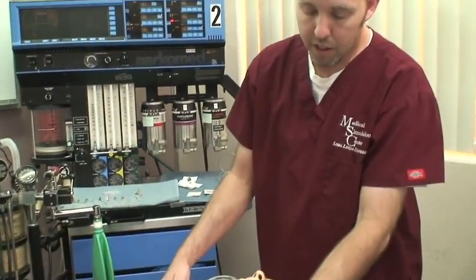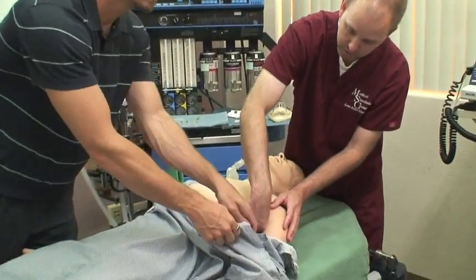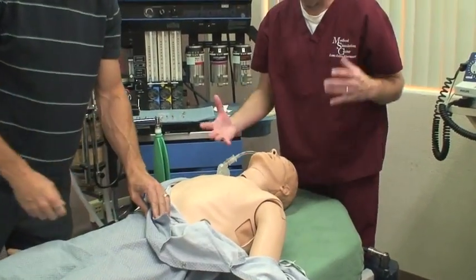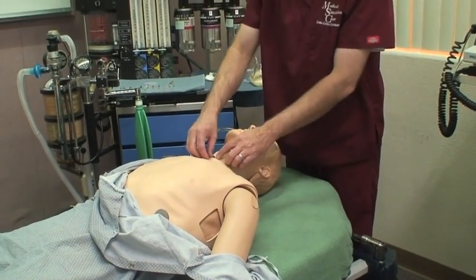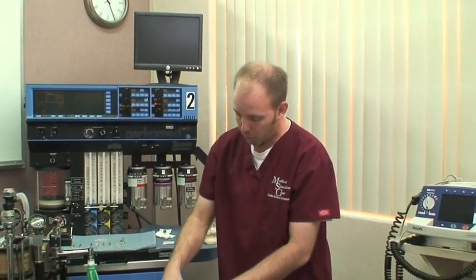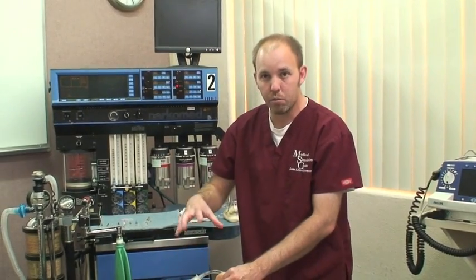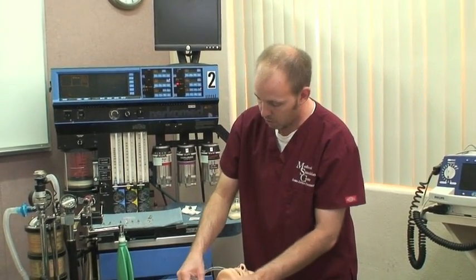He can also do what they call chest tubes when you have a punctured lung — we can put a tube into his chest cavity and allow his lung to reinflate. He can do what they call a needle cricothyrotomy, which is when you have an obstructed airway and they put a needle right into his throat and we can breathe for him through his neck.